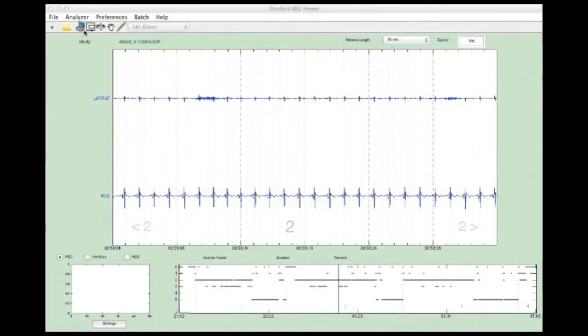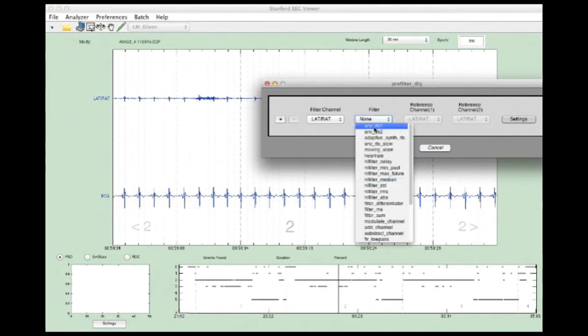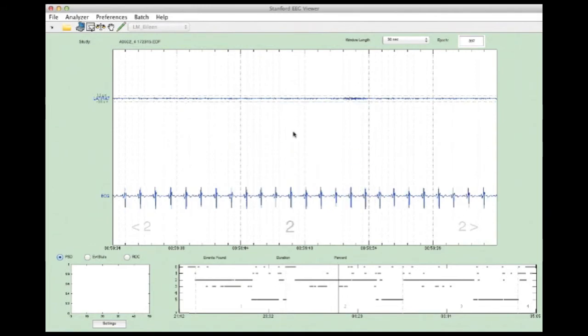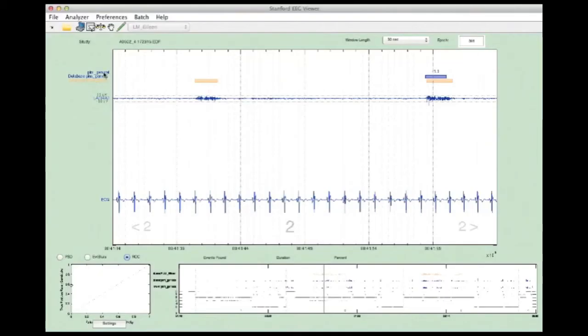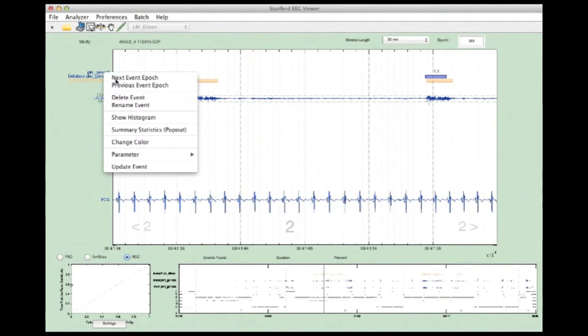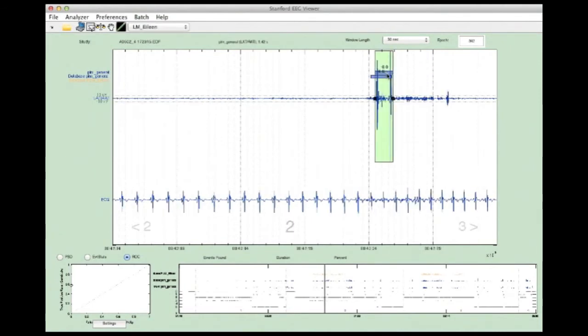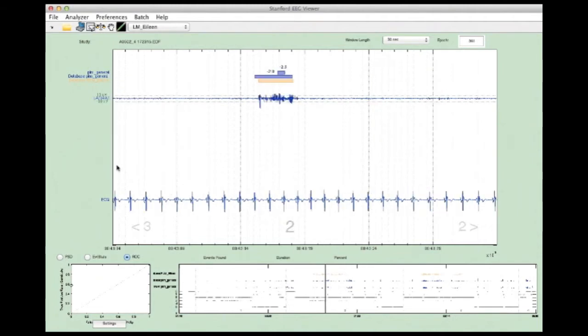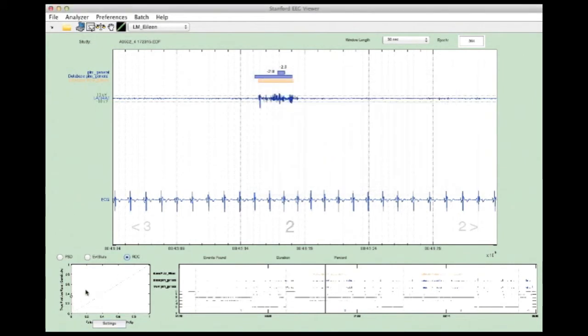Adaptive filtering is another useful feature, which is necessary to remove unwanted electrocardiogram interference when looking for periodic leg movements, or PLMs, in the electromyogram channels. The final detection algorithm used to investigate PLM in general and clinical populations, and its genetic basis apart from restless leg syndrome, was developed and optimized entirely using the SEV.